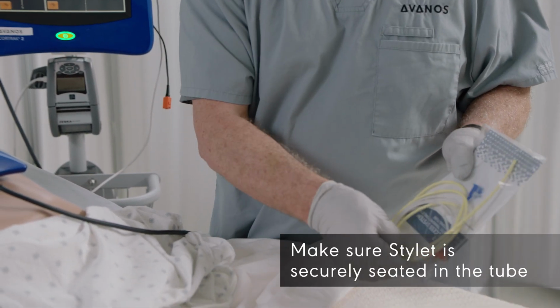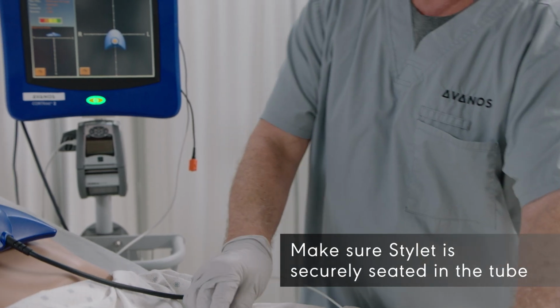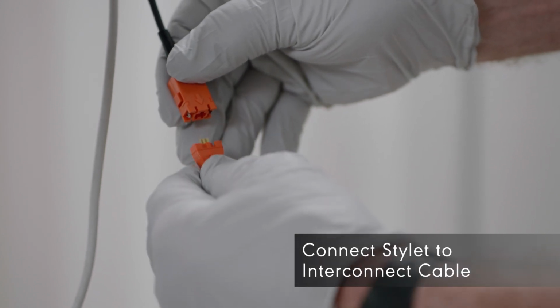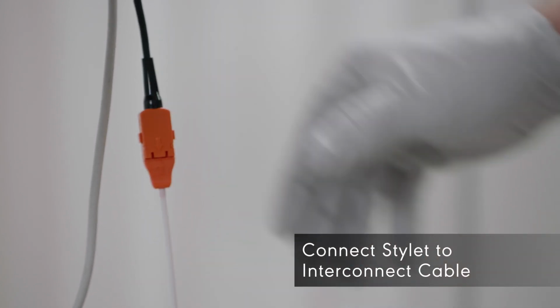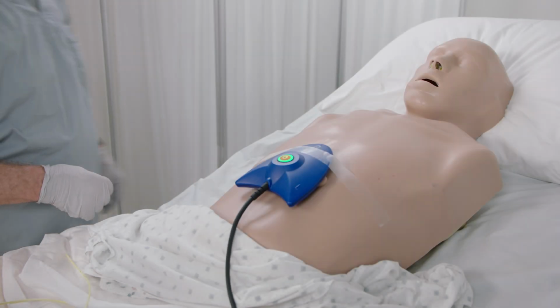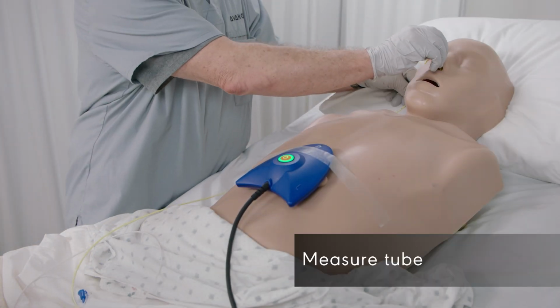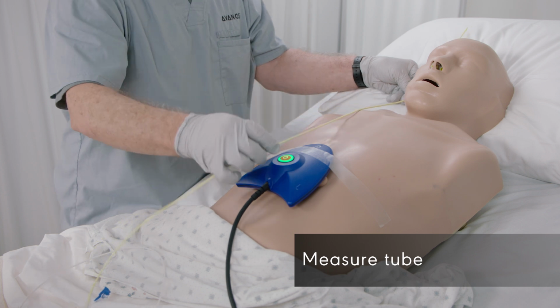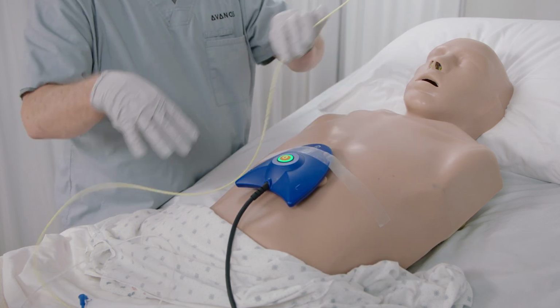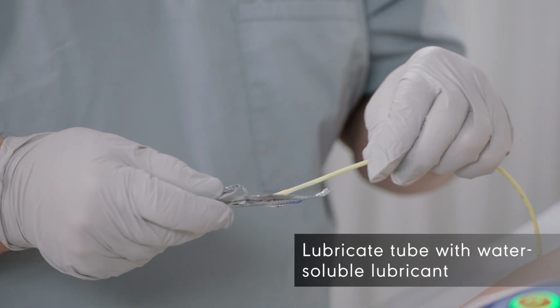Make sure the stylet is securely seated in the tube. Connect the stylet to the interconnect cable. Measure the length of the tube to be inserted per institution protocol. Lubricate the tube with a water-soluble lubricant.